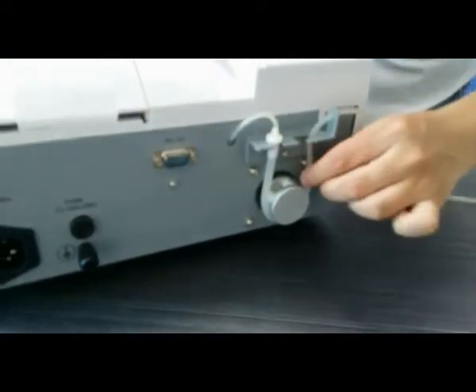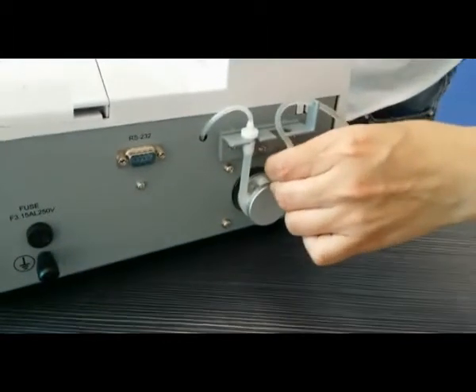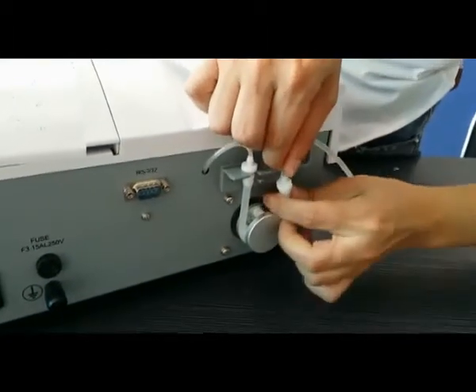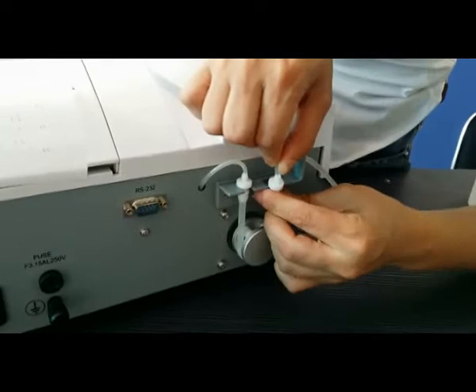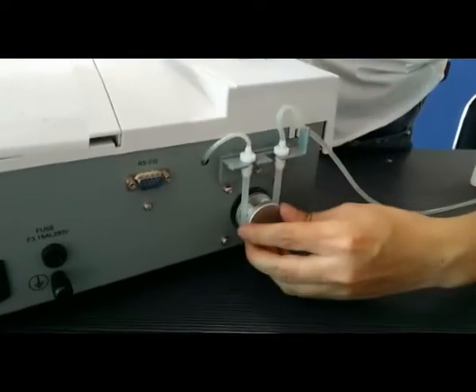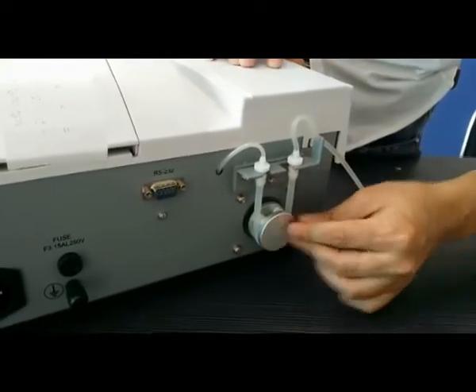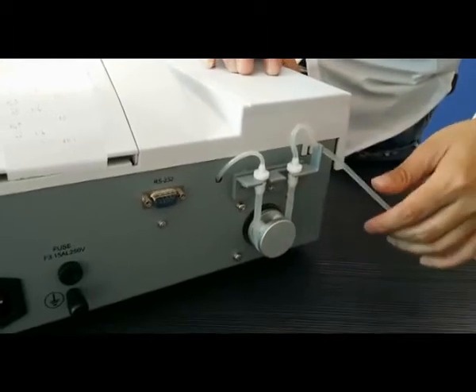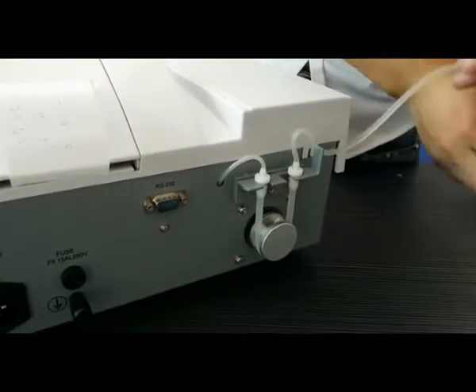But when you want to use it, first you should put the pump tube into the right position and screw the pump head to make sure the pump tube is in the available position.